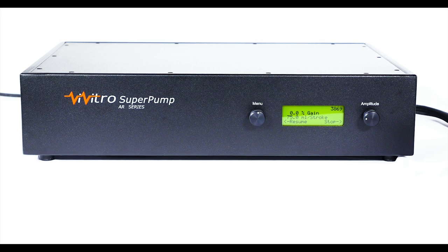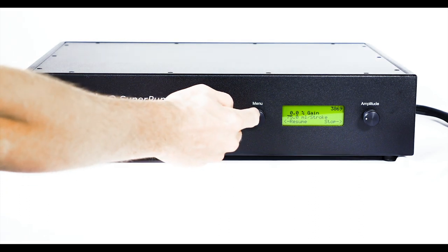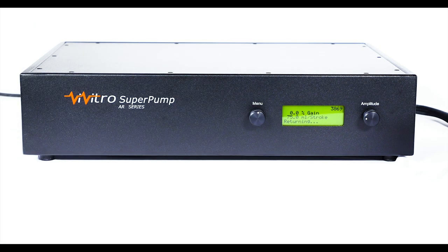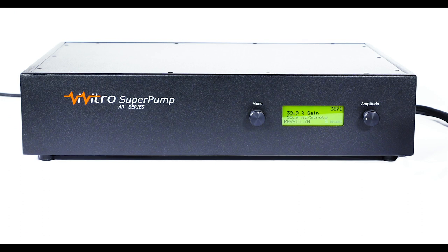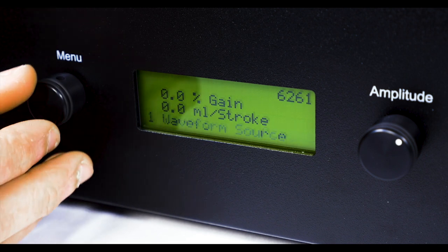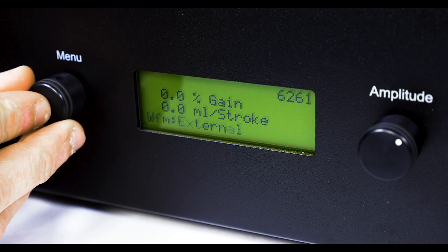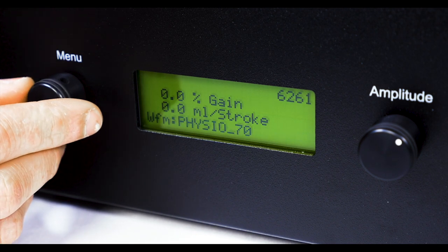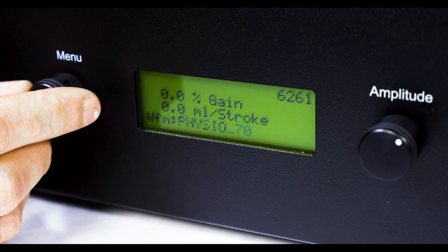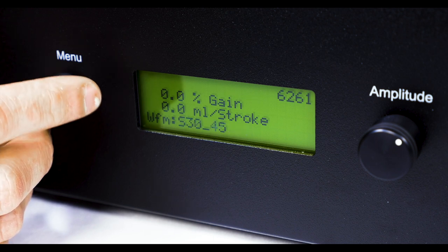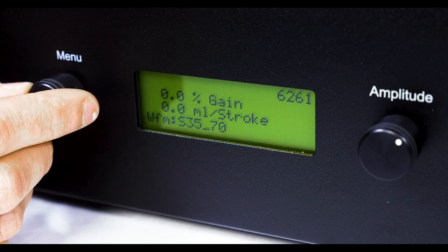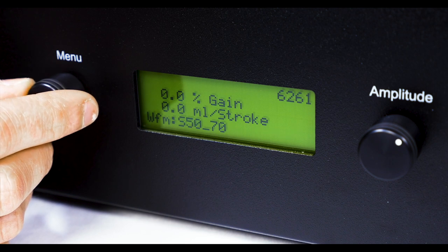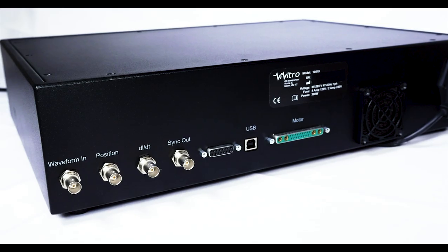The controller is the pump's user interface. It stores waveforms and enables users to control the pump's stroke volume and other parameters. The Super Pump can store 5 waveforms on the controller. Waveforms precisely control the piston position and enable the pump to be used as a standalone device. Onboard waveforms have both a fixed shape such as systolic duration and beat rate.